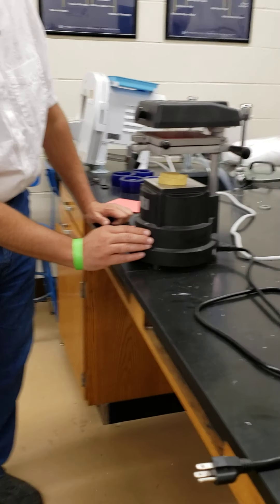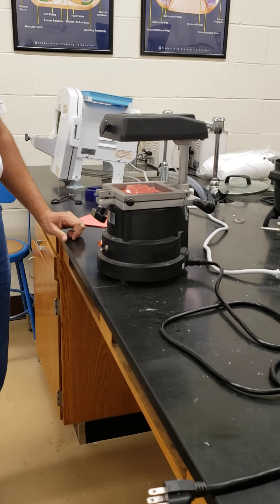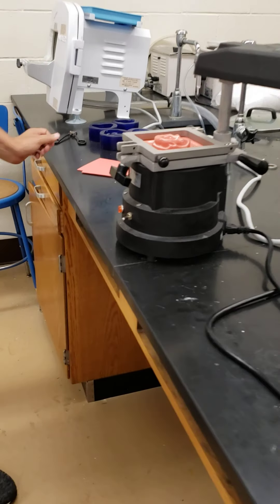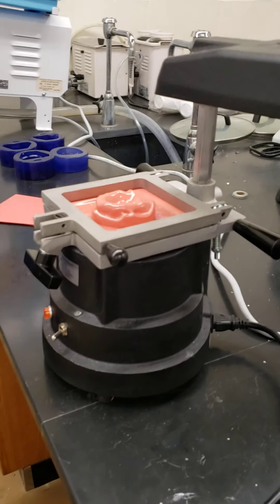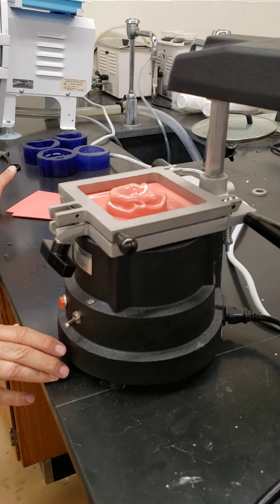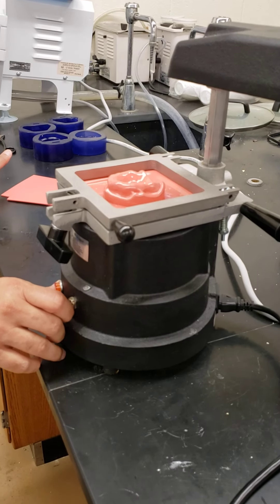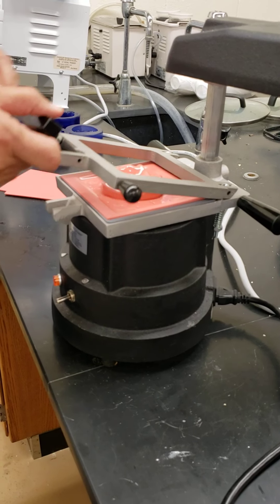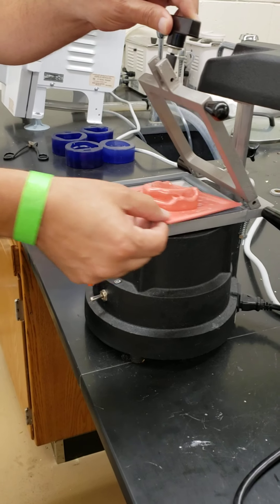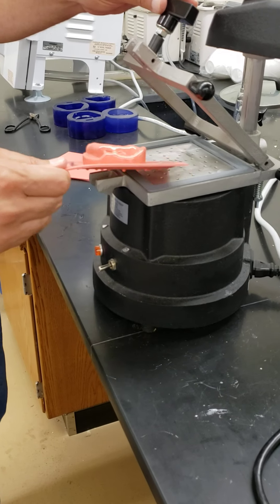You can see it — it's bulging. Just be careful. Look at the shape of the cast — we just need to grind it out. It's still hot.